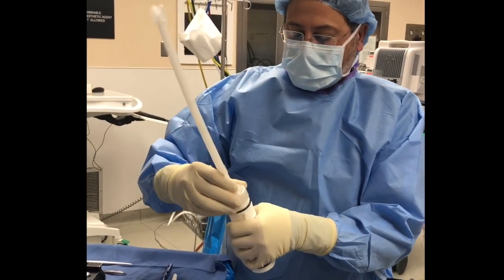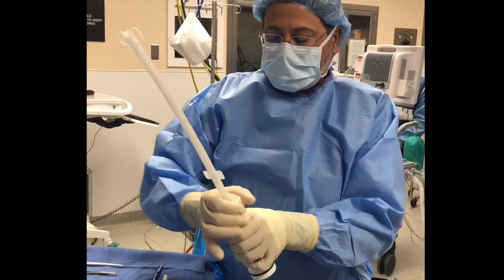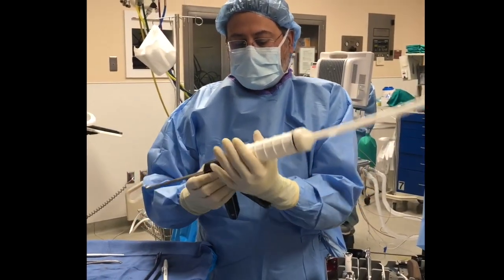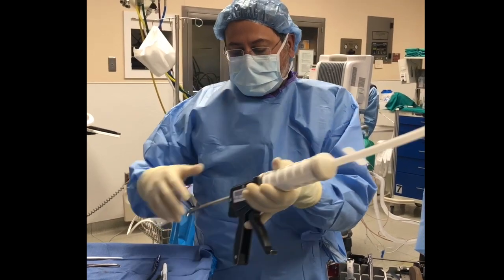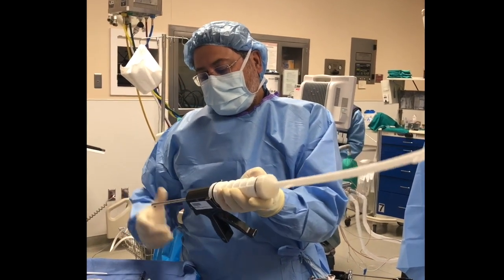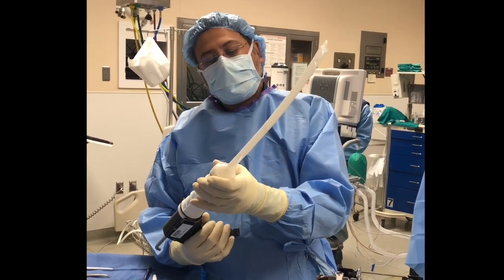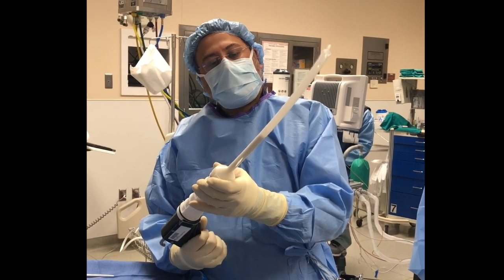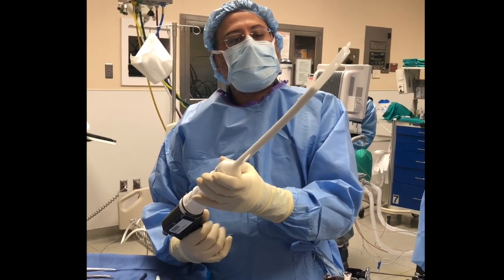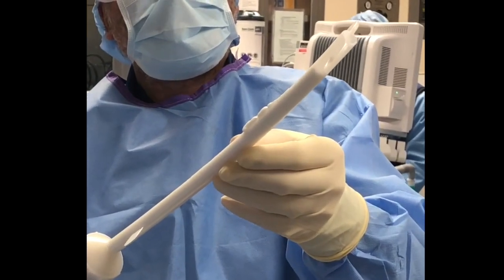This is our tube — this is the ABC nail tube — and it fits on pretty good, just like that. I put that on my gun. This is the standard striker gun. I'm just going to fill the tube up with cement. It might leak a little bit, but it's okay. Even if it leaks, I'm going to fill it up as far as it'll go, right to the top. There's a little leak — that's the perforations so it can break.